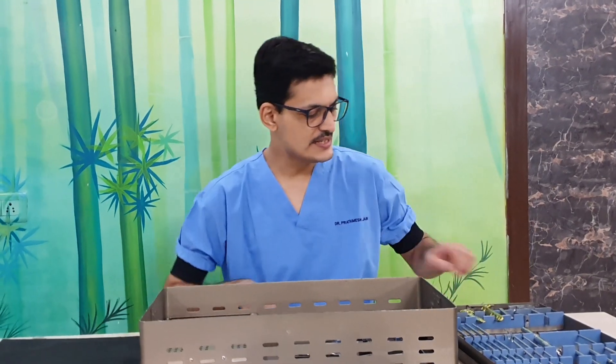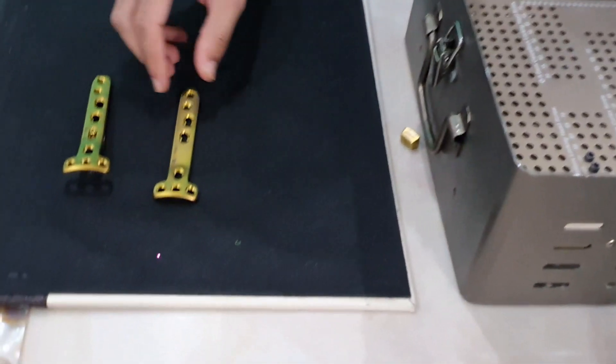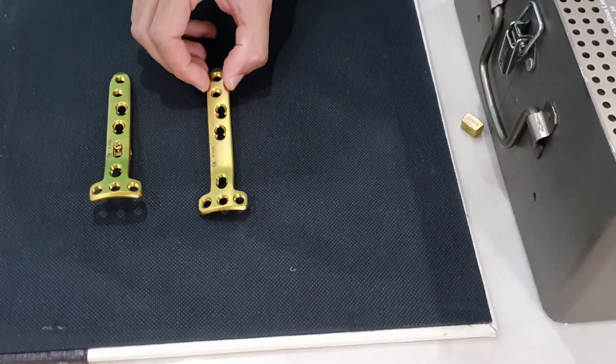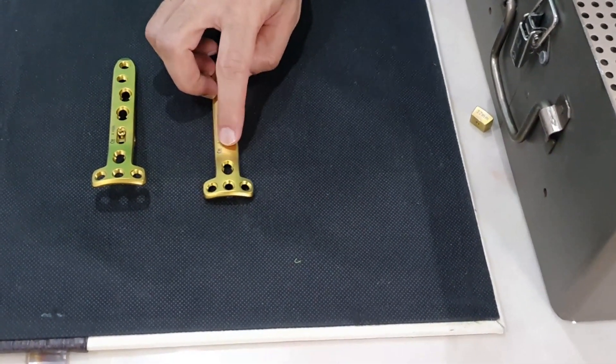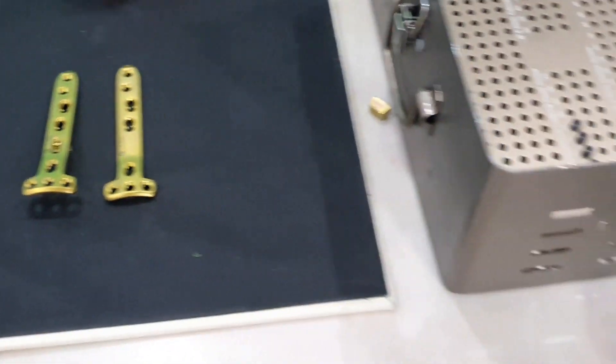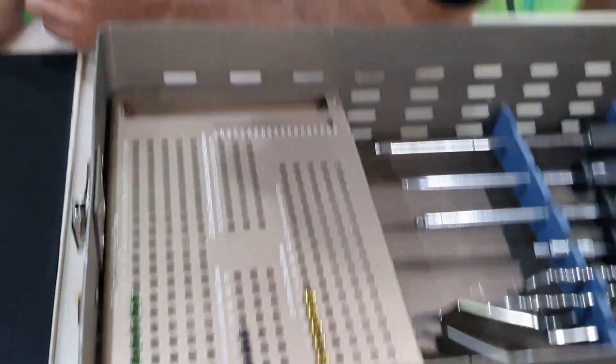That covers the types of open wedge osteotomy. Now I will demonstrate this set, manufactured by OsteoCare — a very versatile set. It has a T-shaped plate; there are two plates available. This is a four-hole plate for the osteotomy on the medial side — one without a center hole wedge and one with a center wedge. Different wedges are available: a 10-millimeter wedge and a 12-millimeter wedge.